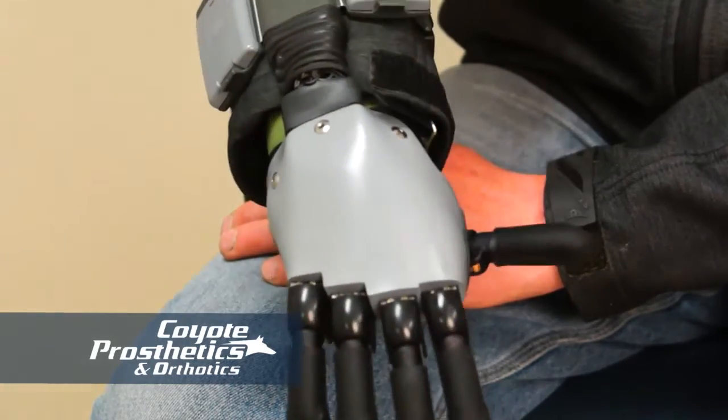Your body adapts. It's kind of like putting on shoes every day. When I do have issues with it being uncomfortable, I bring it over and we do a little sanding or put in some padding, whatever the case may be. The only downside is on a hundred-degree day it's uncomfortable because of the temperature — but that's not really any different than wearing hiking boots when you wish you had flip flops on. It's similar to the same thing.